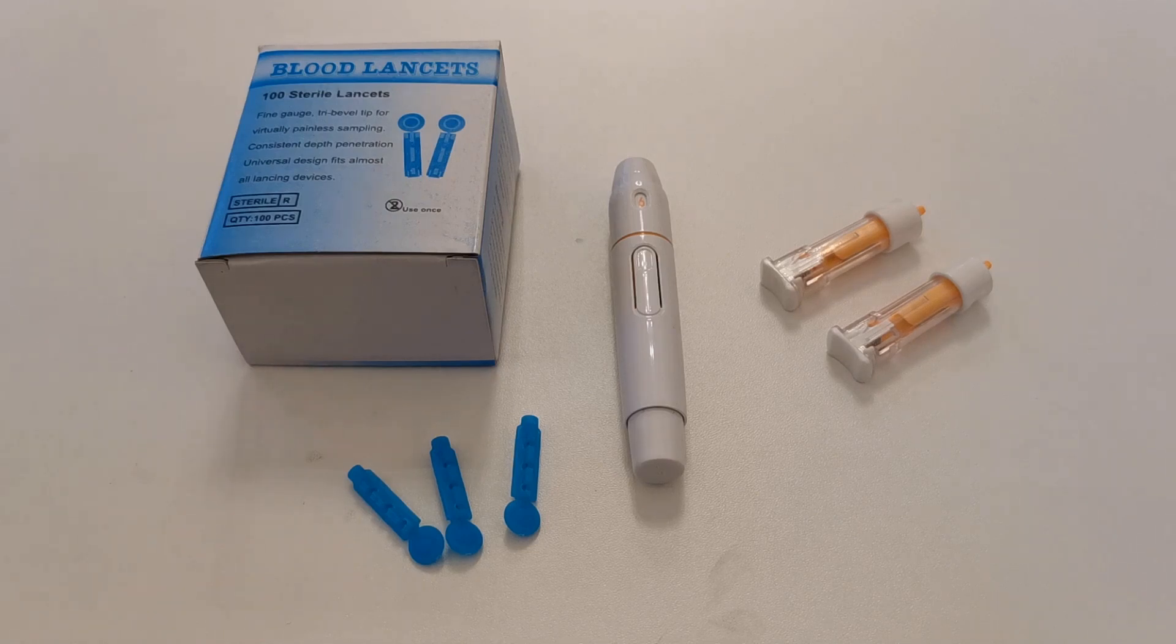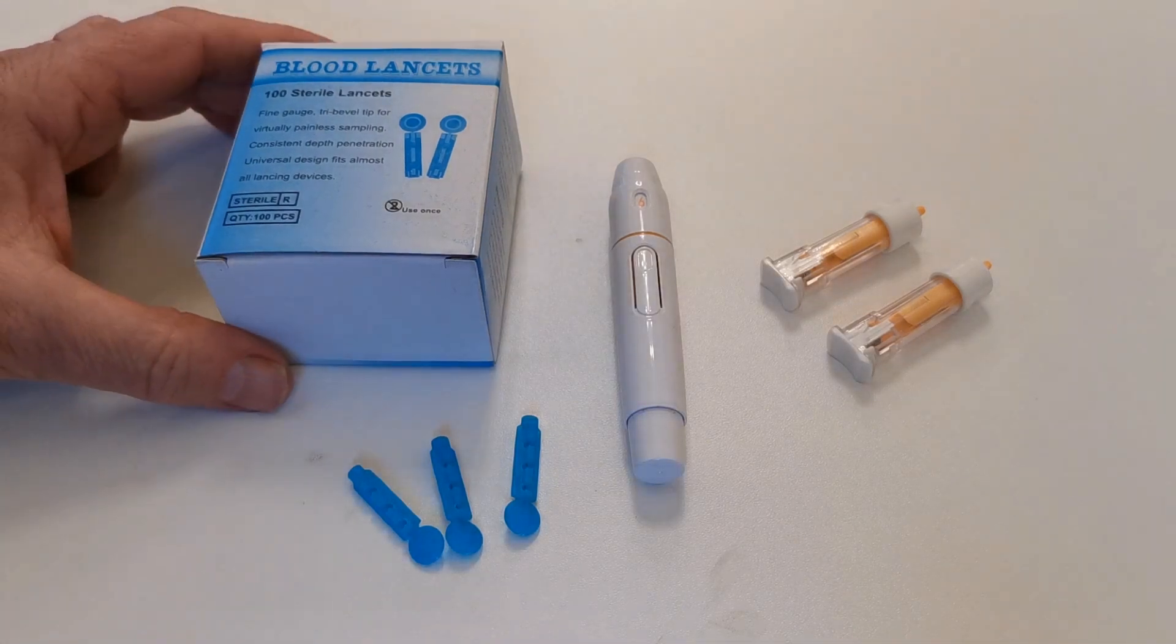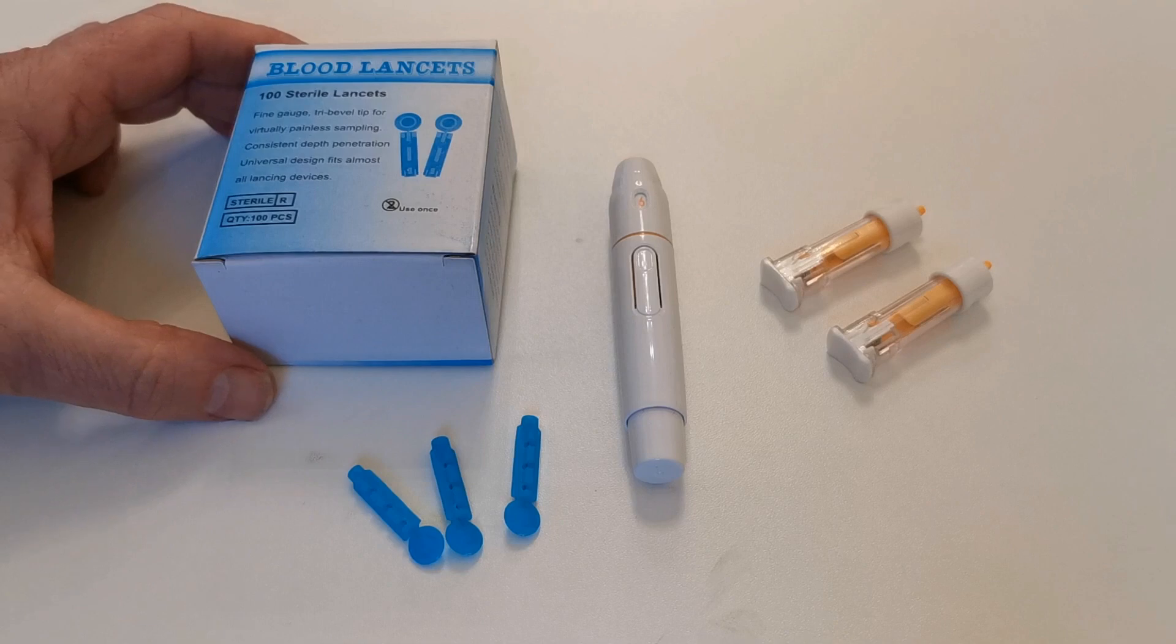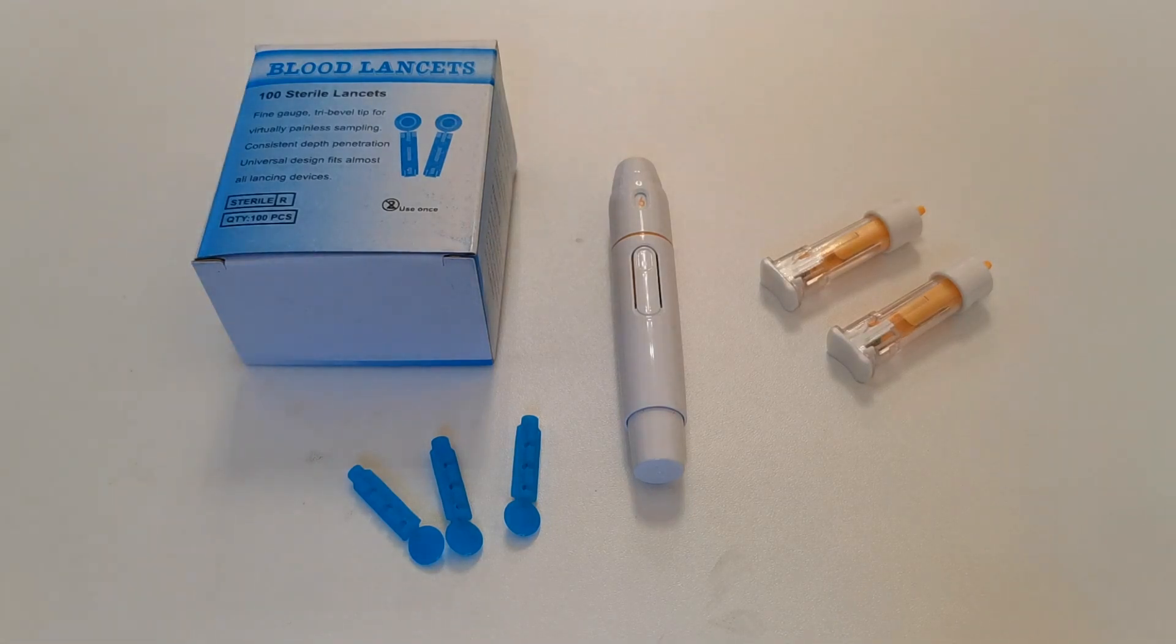It's absolutely critical that you get the lancing of your blood finger samples correct. Without a good lance technique, you are very unlikely to get accurate or reliable test results, whether you're using a disposable test device or a digital meter. There are two common types that we provide for doing finger-prick lancing.